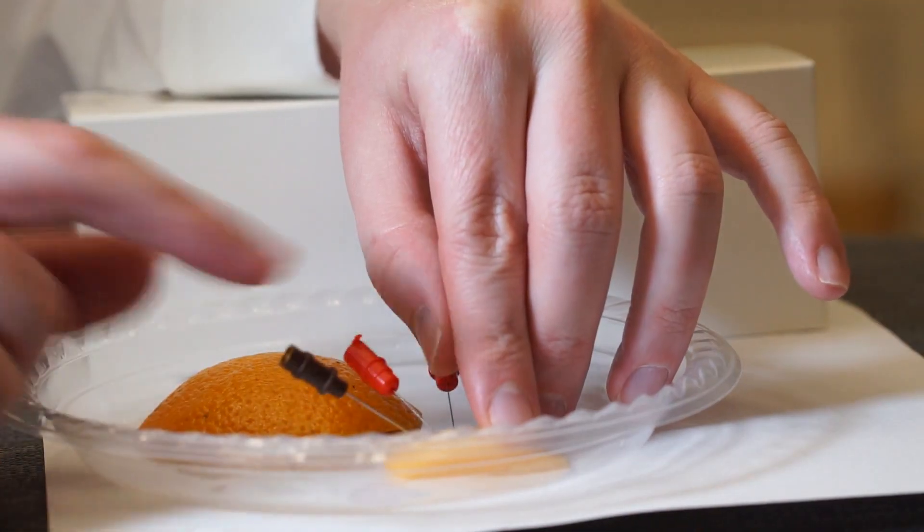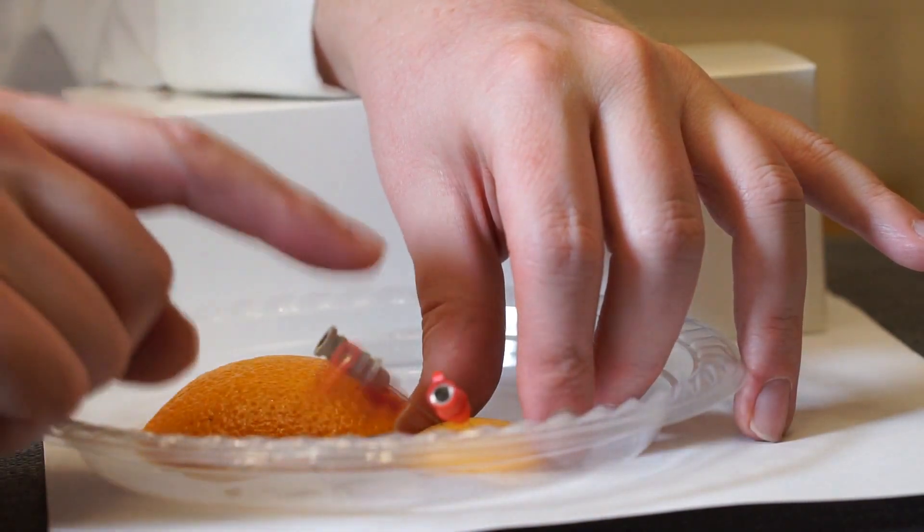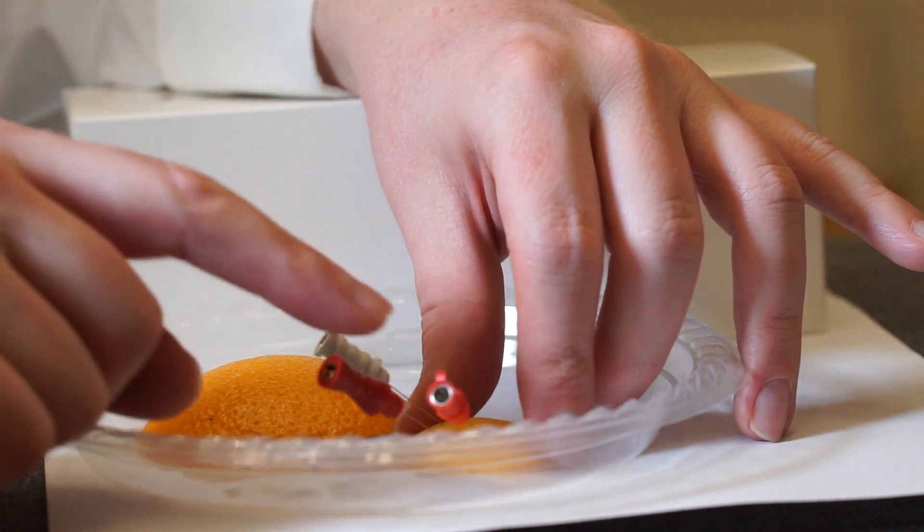However, when it comes to the stimulated studies, it's actually a lot easier in many respects because the needle is that bit thicker. It maintains its position and has less wobble compared to the facial ones, which are more prone to movement and potential slippage. There is another consideration, particularly for pediatric practice: the recording zone of the needles is several millimeters below the actual tip, beneath the bevel. Because of that, one has to push the needle in that little bit extra — a little bit deeper — in order to get to the zone where the muscle fibers are generating signals.